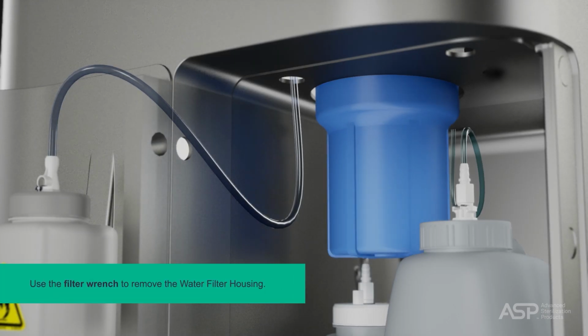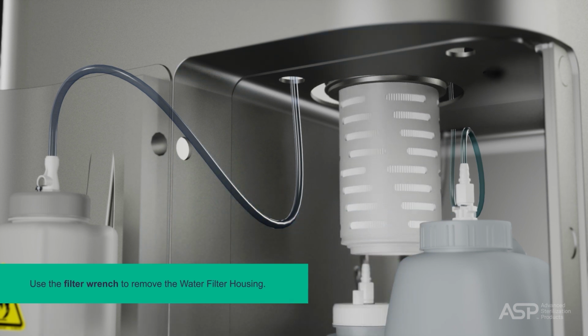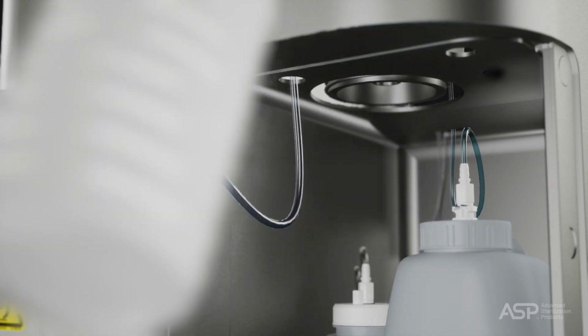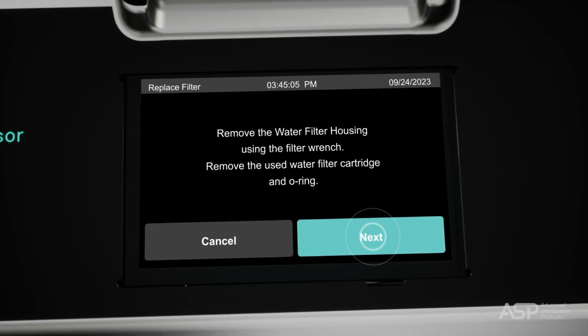Now, use the filter wrench to remove the water filter housing, then remove the used water filter cartridge and O-ring. Empty any remaining water in the filter housing and tap the Next button.